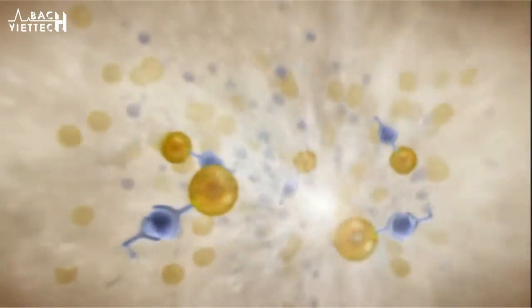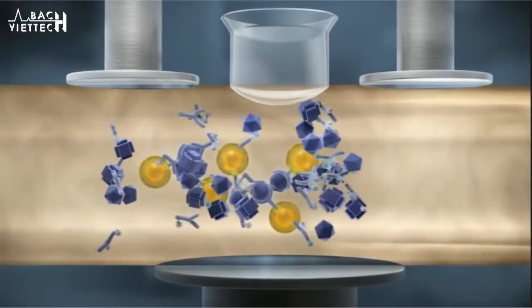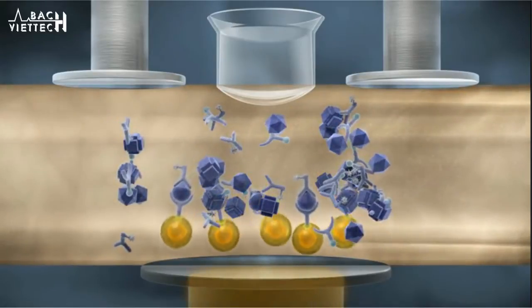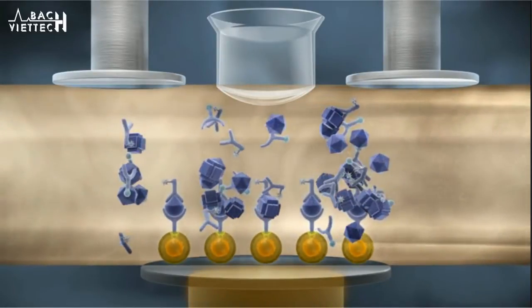The solution is aspirated into the measuring cell. A magnet is applied and the paramagnetic beads bind to the surface of the measuring cell.